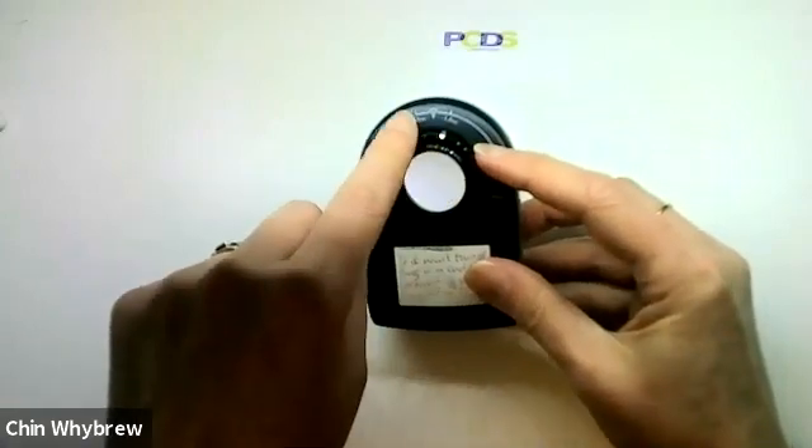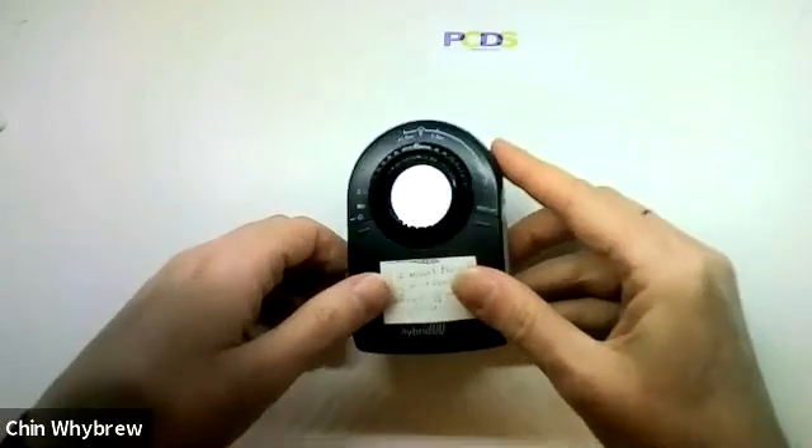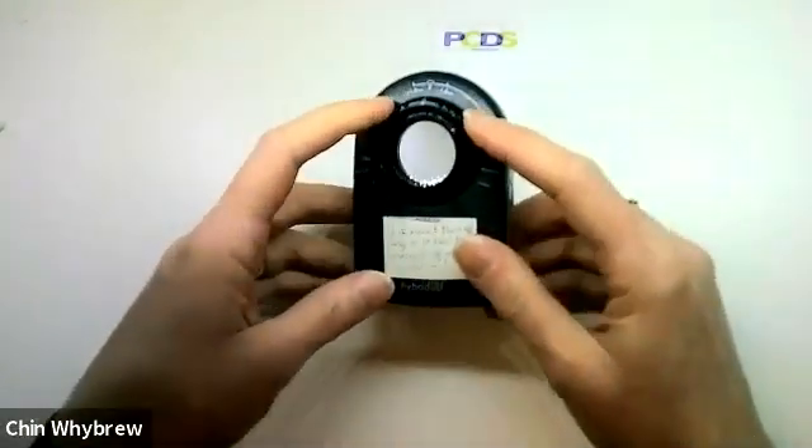It has some markings here. This marking at the top shows that it will now be perfectly focused for a flat lesion, which is really good if you're using your camera.